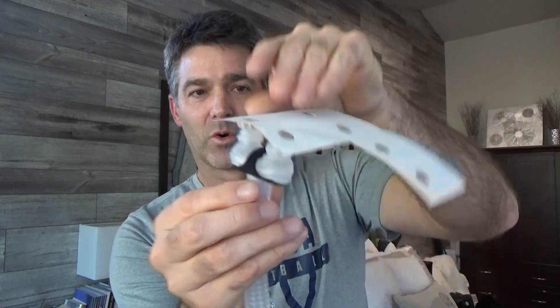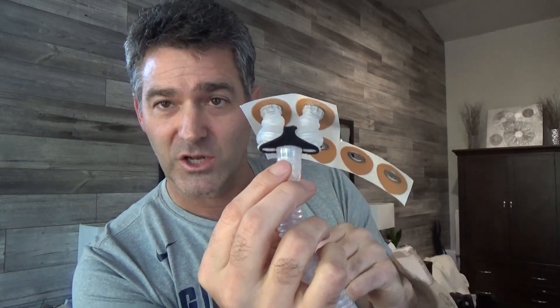What the Bleep Eclipse is doing is bypassing the need to plug anything in — it is using magnet technology. We're just putting these halos on our nose and then the connector snaps right onto it magnetically. Nothing goes into your nose; it just attaches to your nose. So what are some of the biggest complaints about CPAP masks? Finding the right fit, headgear that's hard to adjust, headgear that slides up or down, mask lines on your face, and big time: leaking. This addresses every single one of those problems.